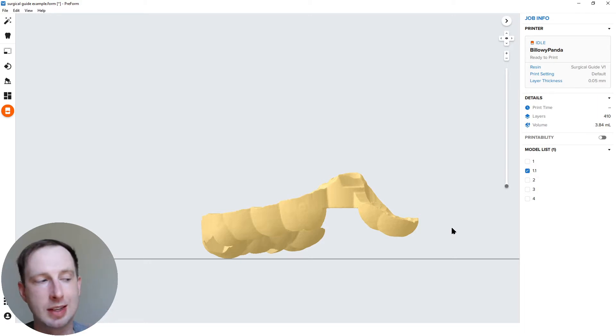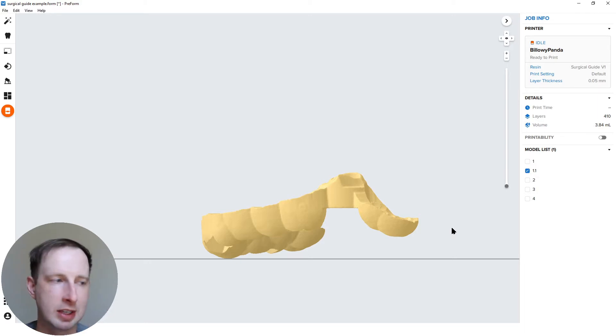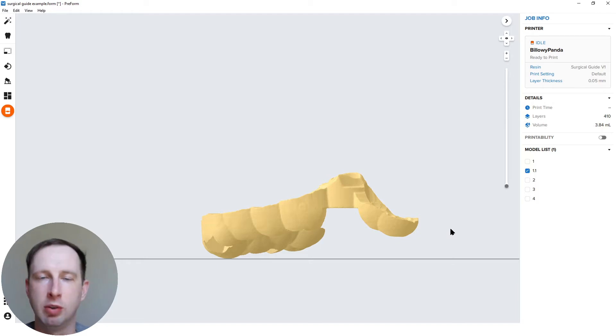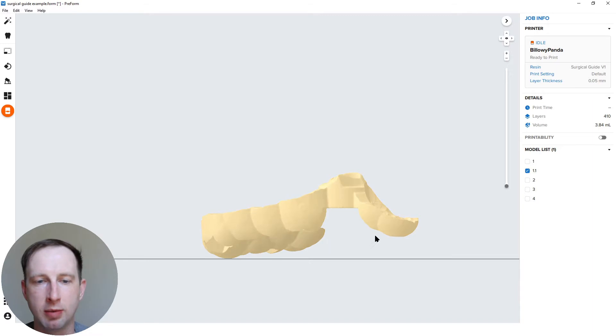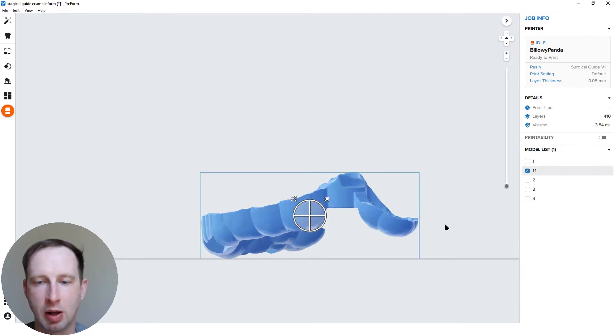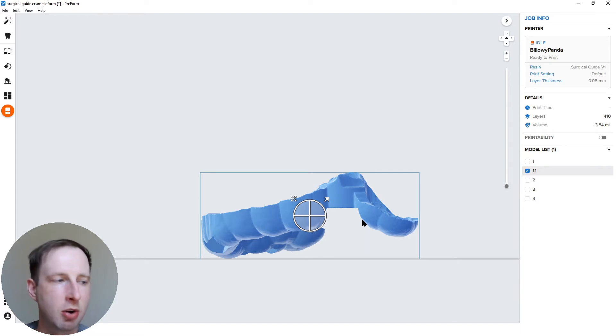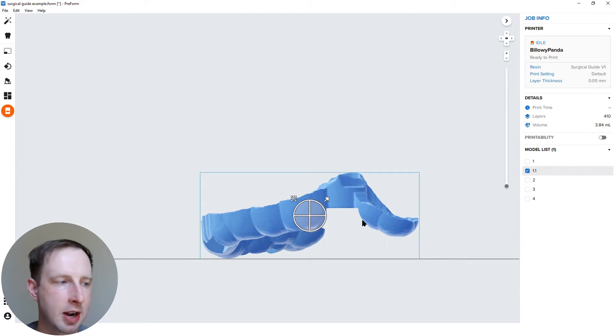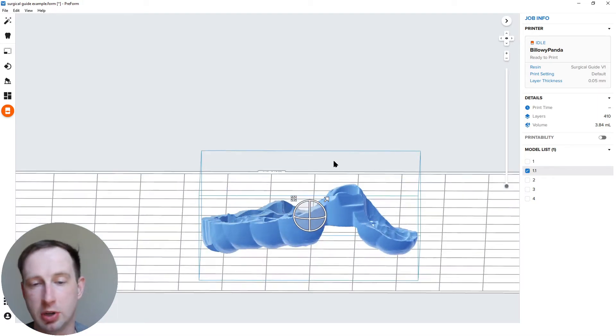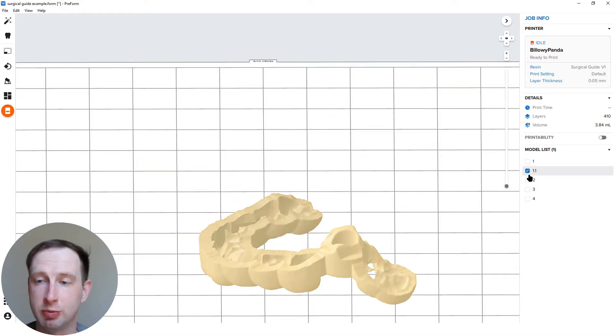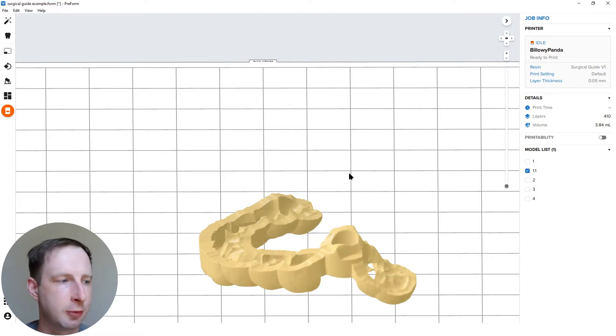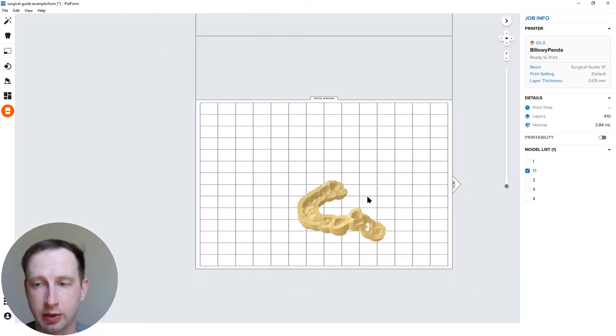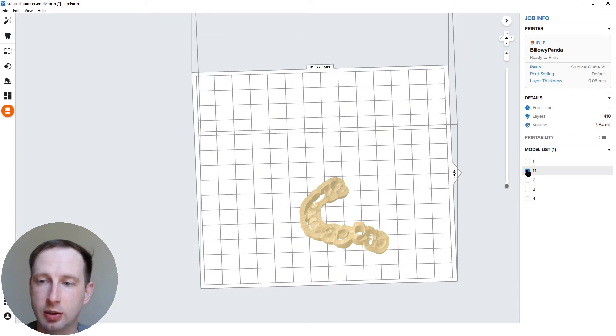So sleeve insertion direction or sleeve hole is primary. Secondarily is to look at the overall angle of the part. Don't really go above, if this isn't a mandibular line, we're probably pretty parallel actually, but maybe a couple degrees. Don't go above like 15 degrees, 20 degrees angulation. You'll start to get less than ideal fitments on some cases. But some people message me on this stuff and be like, I get perfect fits and I did 45 degrees, but to each his own. That's what I've seen in testing. And we've done a lot of testing on this material, especially.